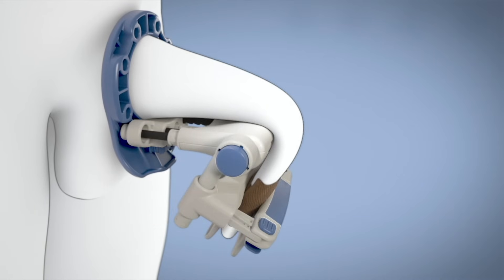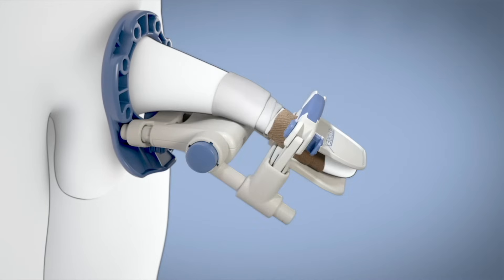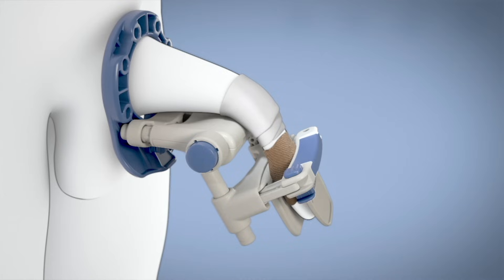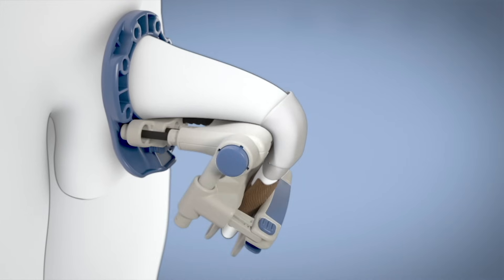Do what is possible at first and work your way up. Many men have found that wrapping the shaft of the penis with tissue or gauze allows for the penile skin to slide on Restorex, making it easier and more comfortable to achieve the third stop.